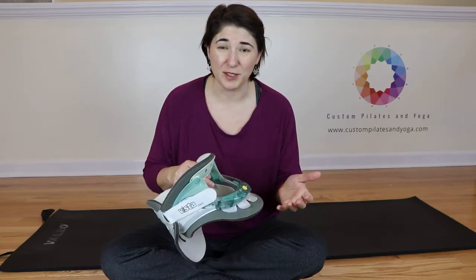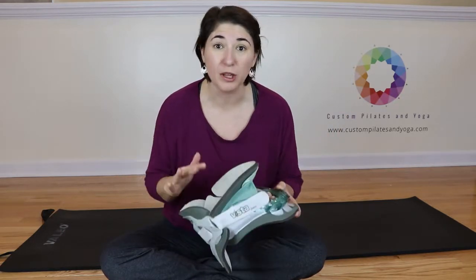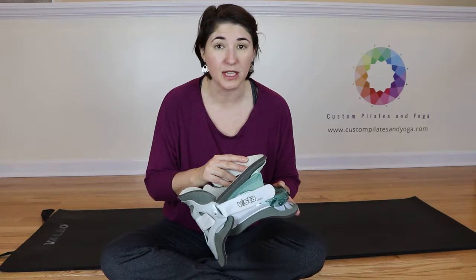You don't want to start from scratch. So if you have the choice between buying a whole new collar or buying a set of pads, I would completely recommend you buy a new set of pads.